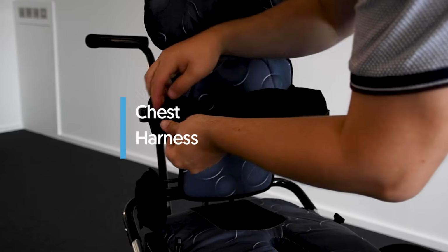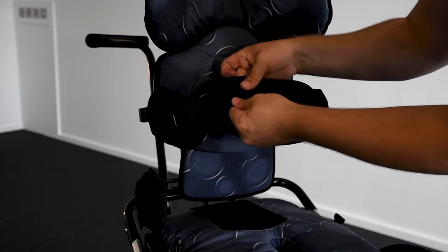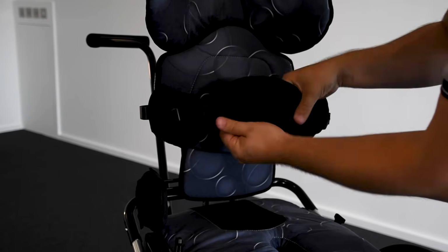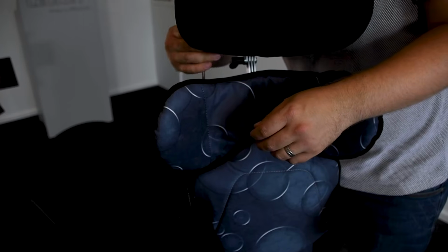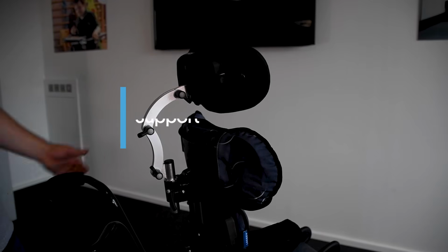Chest harness. To change the width of the chest harness, lift the front cover, adjust the Velcro straps to the desired width, and replace the cover. Shoulder support laterals, size 2 only. To adjust the angle of the shoulder support laterals, loosen the screw on the top bracket, move laterals to the required angle, and retighten. Contoured head support.